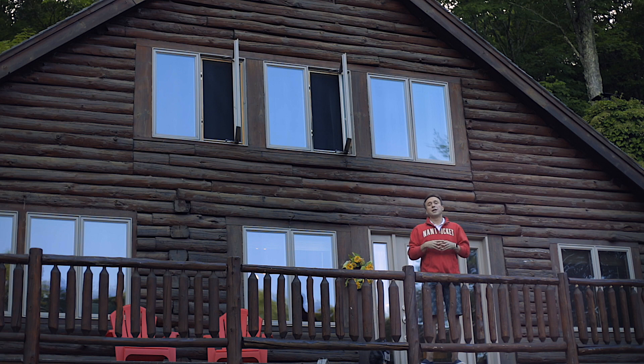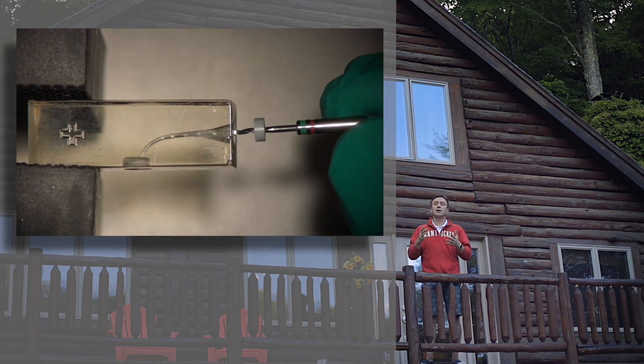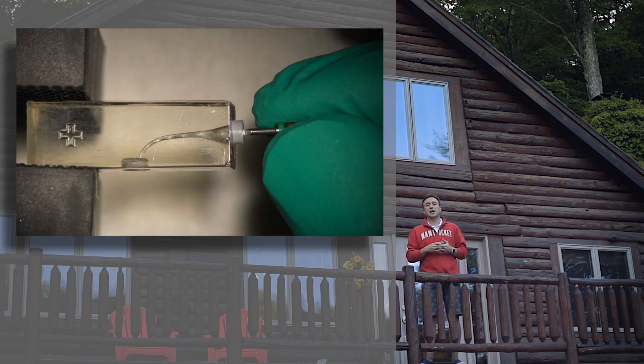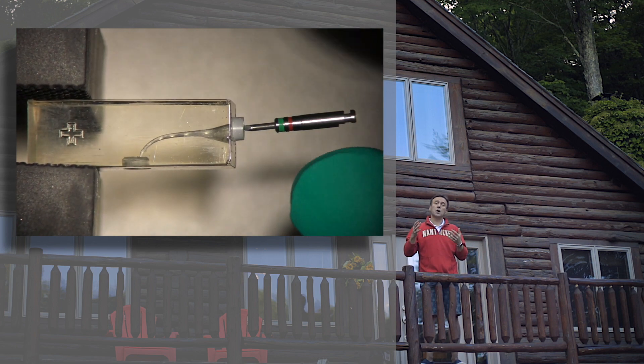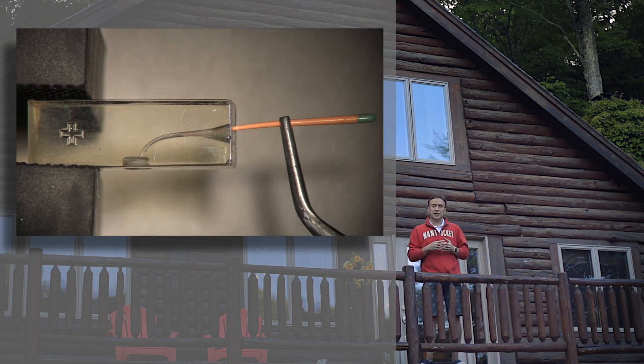Also make sure that you inject only in the coronal half of the root. The technique, demonstrated here using a resin block: after you've done your master apical file, you take the corresponding size gutta-percha cone — BC coated cones — or sometimes one size smaller to get a good fit that goes all the way down to the apex. You have to make sure you reach the full length with your master cone, leaving a little bit of room for backflow of the sealer.